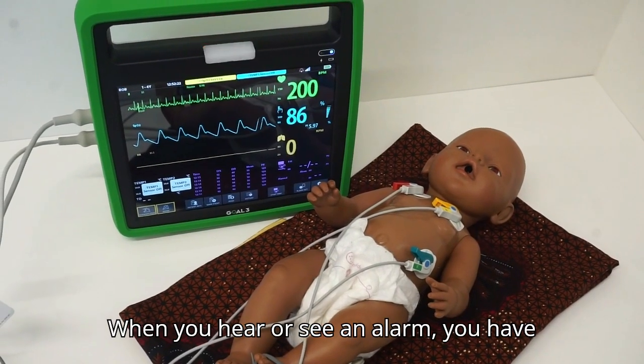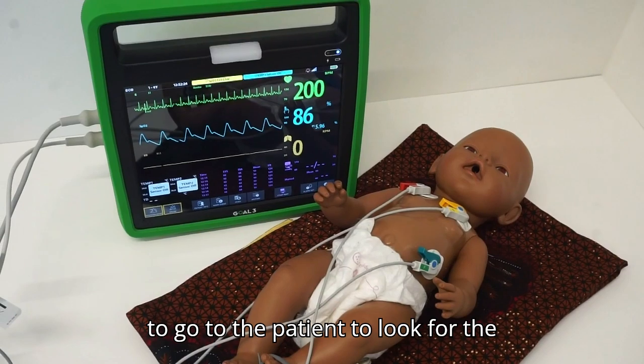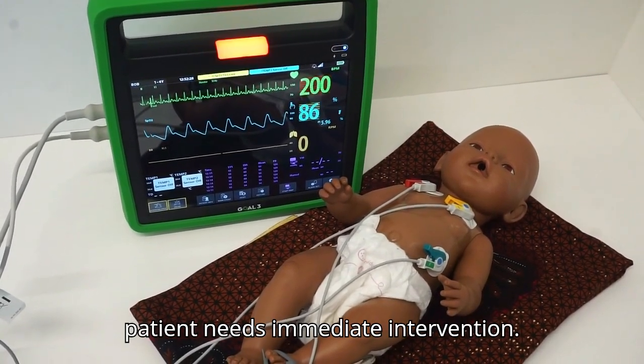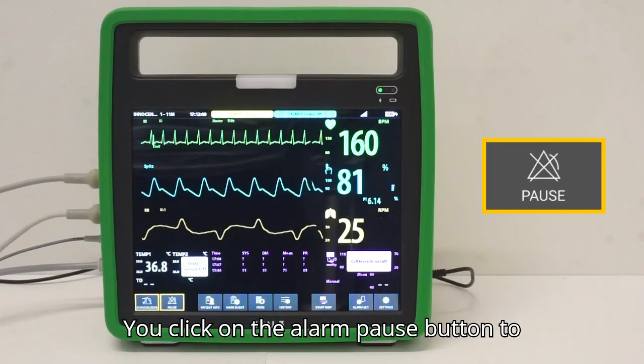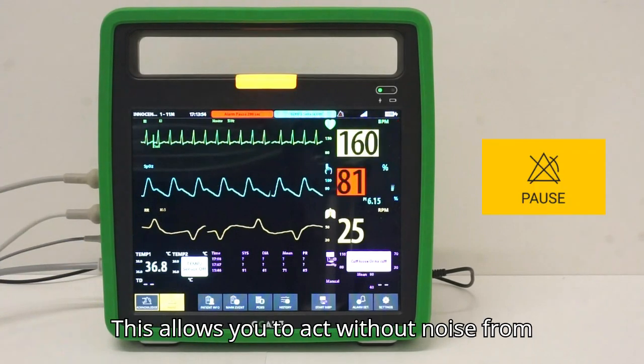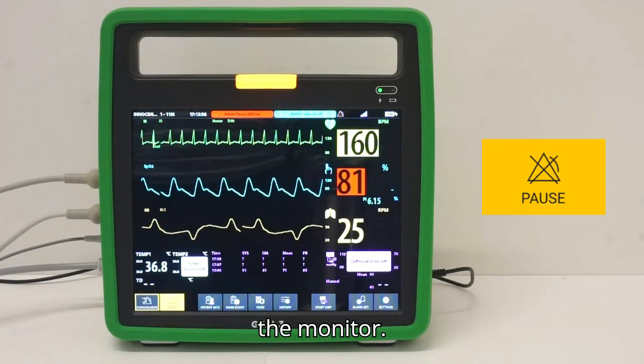When you hear or see an alarm, you have to go to the patient to look for the cause of the alarm and to check if the patient needs immediate intervention. You click on the alarm pause button to stop the sound for the next few minutes. This allows you to act without noise from the monitor.